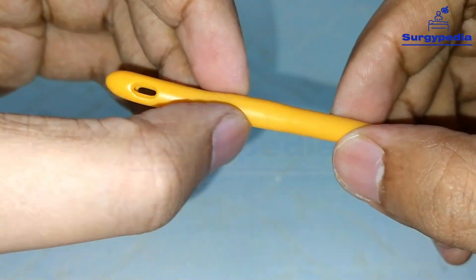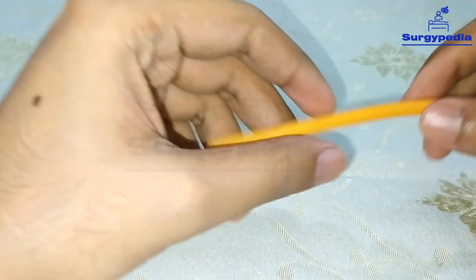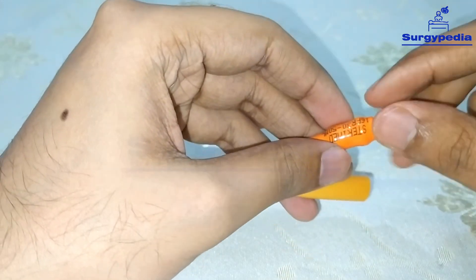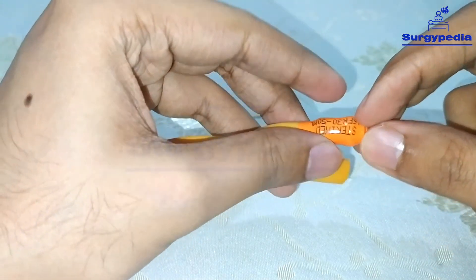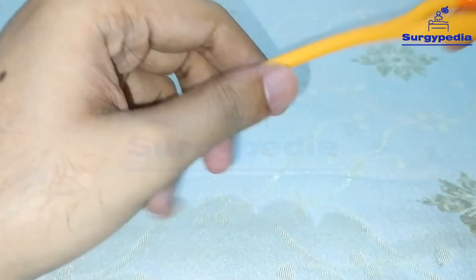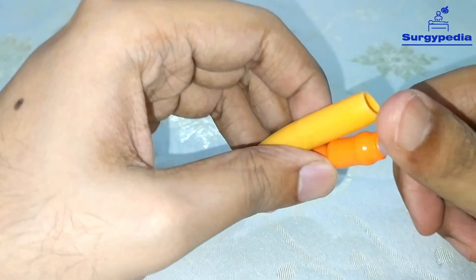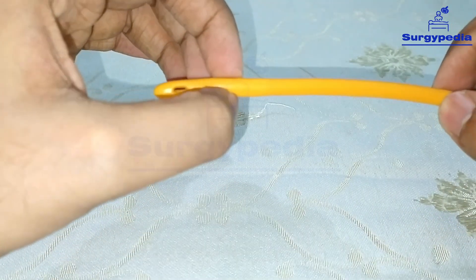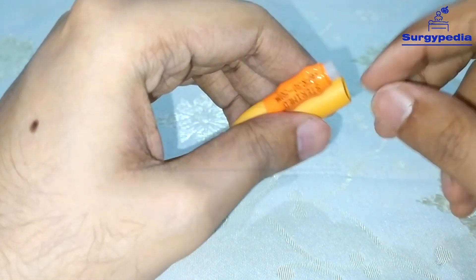We actually have the balloon here — you can feel it. After we have inserted the Foley's catheter, we need to inflate the balloon. We take distilled water in a syringe and inject about 20 ml. The balloon capacity is 30 to 50 ml, but in clinical practice 20 ml is sufficient. Many examiners ask: what fluid is used to inflate the balloon? It is not normal saline — it is distilled water, because normal saline contains salt which may precipitate inside the balloon if the catheter remains for a long time. The main channel is then connected to a urine bag.